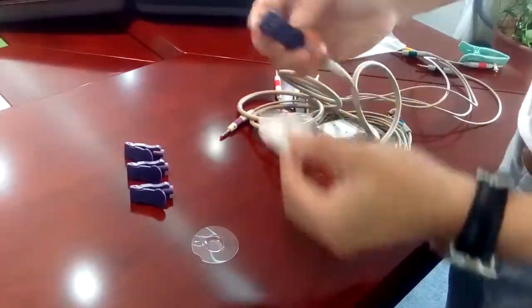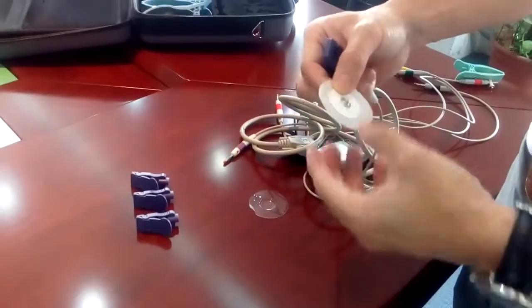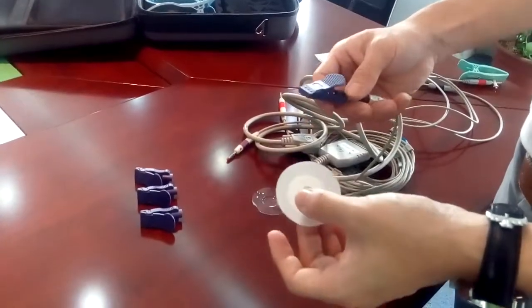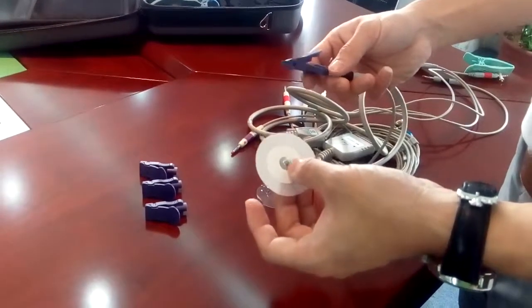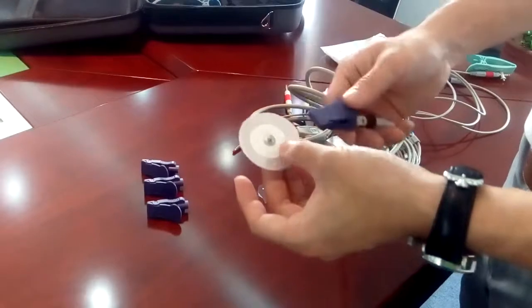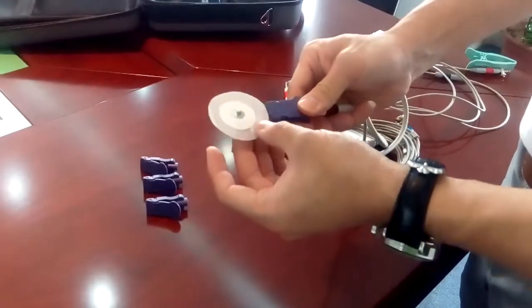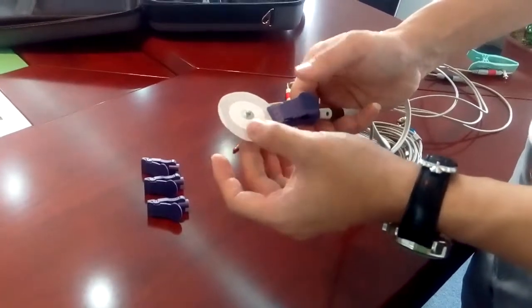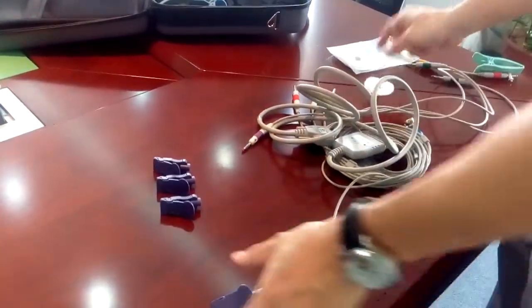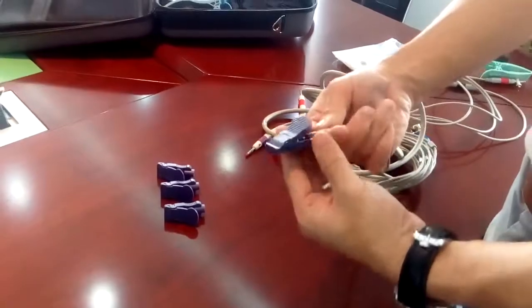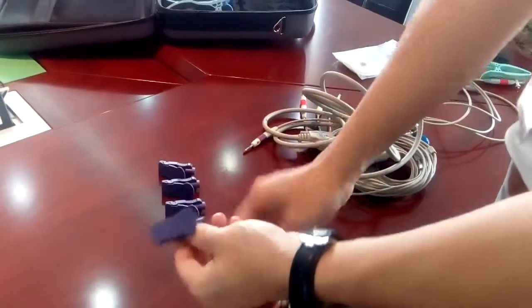You may see some different disposable electrodes. One version is very popular, it's the tab electrodes. They have the tab, so you just attach like this. So we do have the solution for neonates.